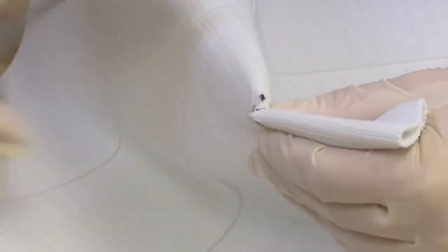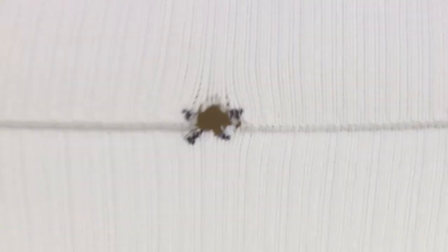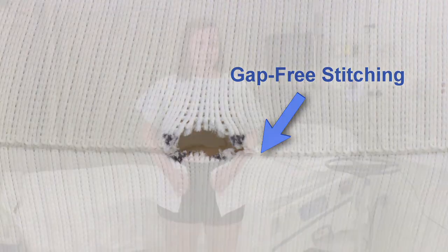When the fabric is stretched, the cut will become a round hole. Cut away any loose fibers from the fabric around the area of the hole. The binder will not unravel and will retain its properties for providing support and compression, even if the cut crosses the gap-free stitching that joins the panels.